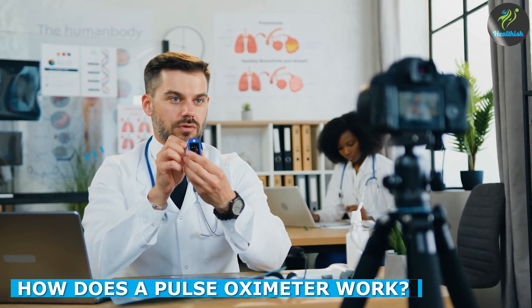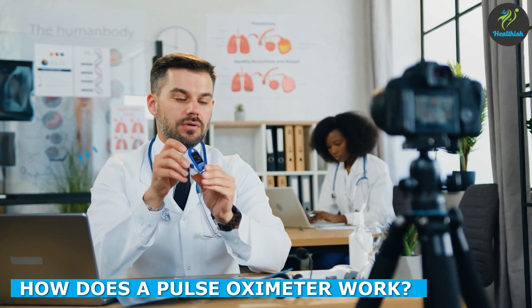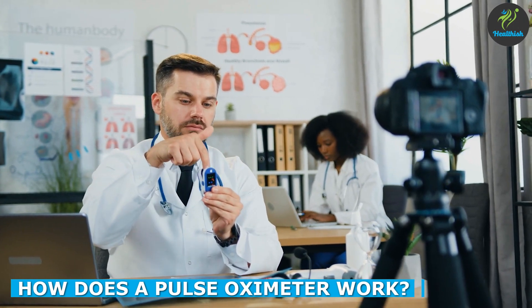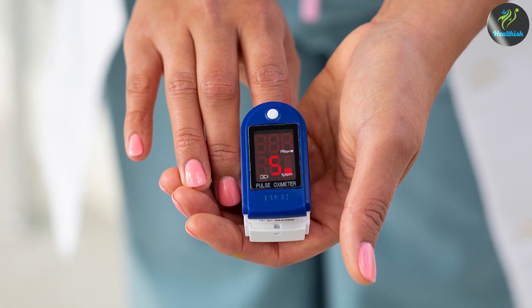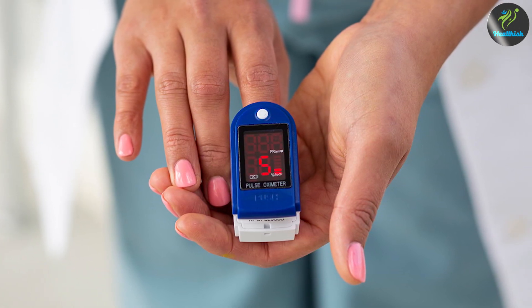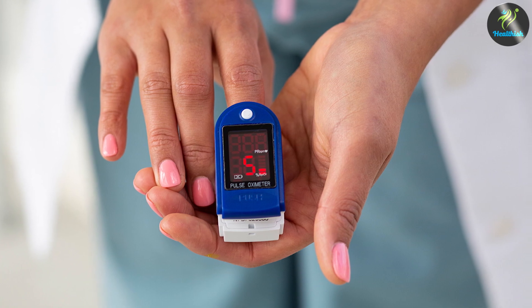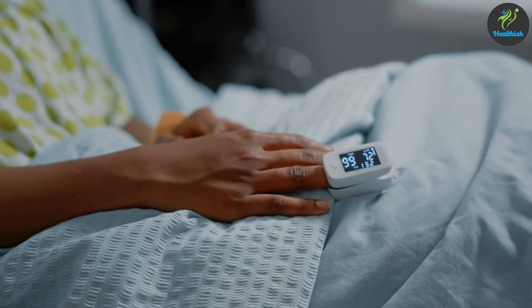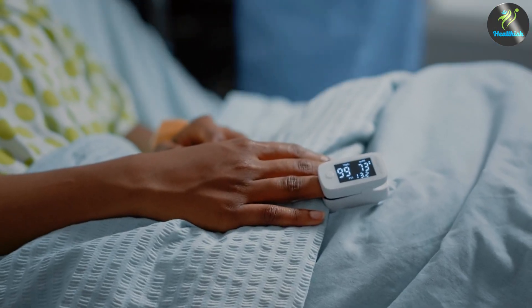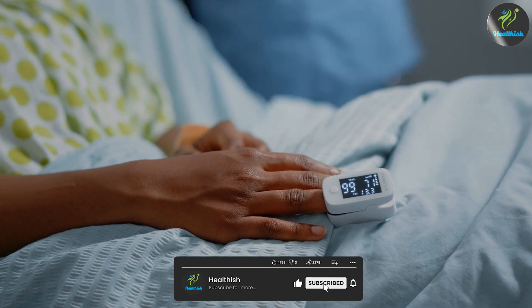A pulse oximeter works by using two wavelengths of light, typically red and infrared. The device is placed on a patient's fingertip, earlobe, or toe, and the light is transmitted through the tissue and blood vessels. The amount of light that is absorbed by the blood is then measured and used to calculate the patient's oxygen saturation level.